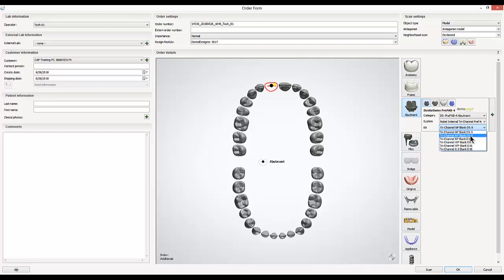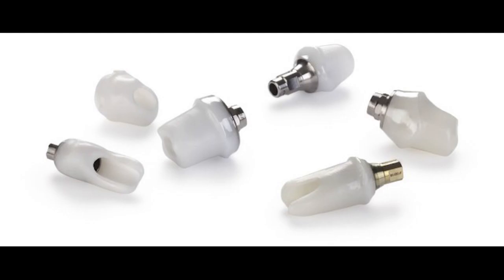In this case, I'm going to be doing a titanium abutment, so the only options I have available are titanium blanks. Otherwise, if I were doing a hybrid option, I would want to choose one that mentioned the specific titanium base I would be using.